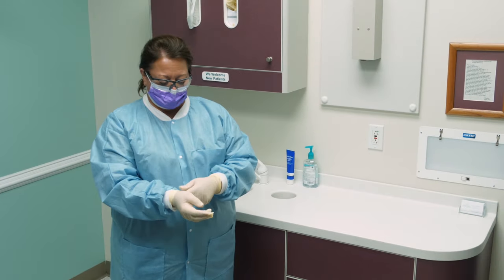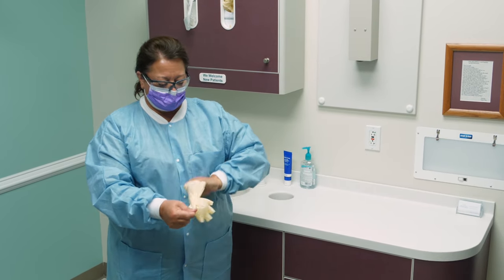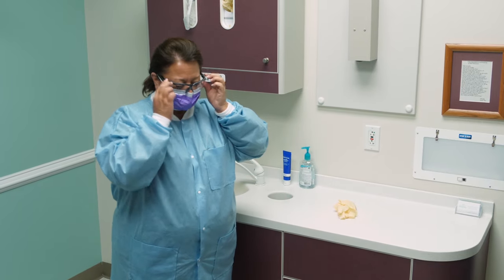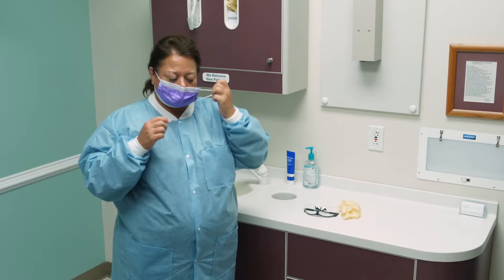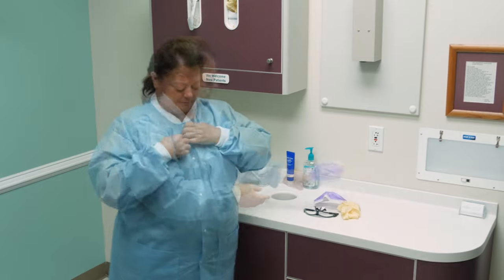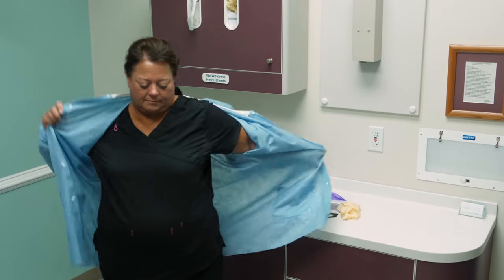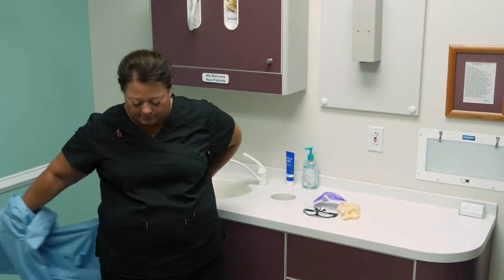To remove the PPE, do this in the reverse order. Start with your gloves, then eyewear, followed by the face mask, and finally the gown or jacket. Remove and handle each item carefully as shown to avoid cross-contamination.